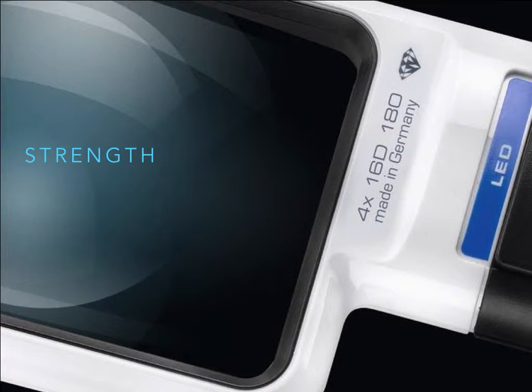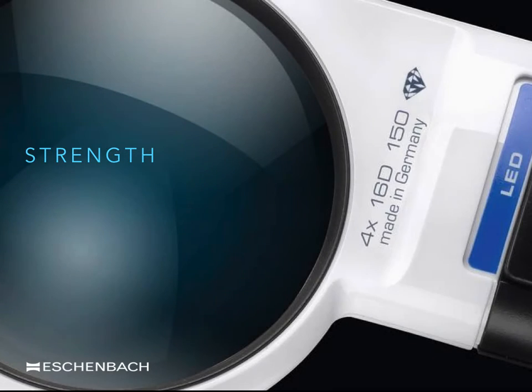In this picture, the magnifier gives four times magnification. This means that the magnifier will increase the size of printed text by four times its original size. Recent improvements in design and technology have seen an increase in the range of good optical quality lenses available in a wide range of strengths or powers. This is also a four times magnifier, although in this picture the lens is circular. Patients will often have a personal preference whether using a rectangular or a circular lens, and this will often depend upon what type of task they are using the magnifier for.